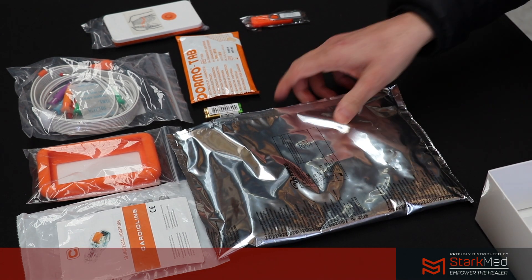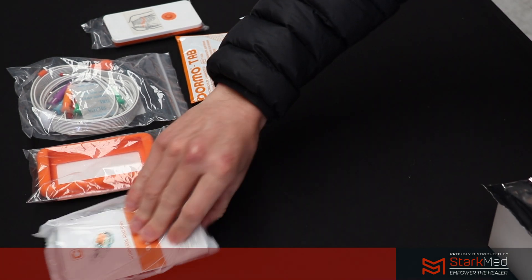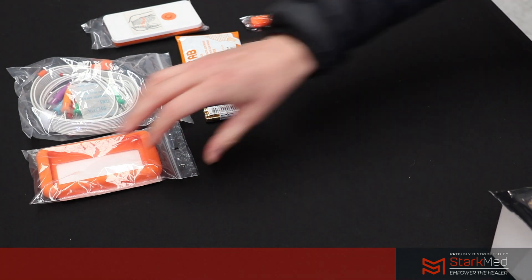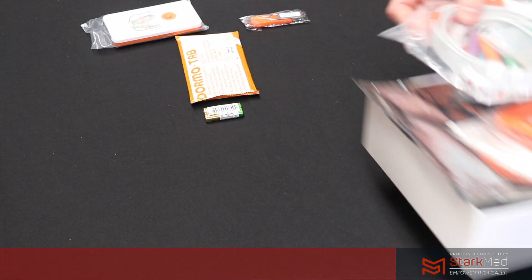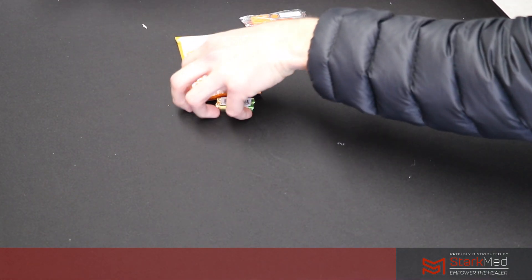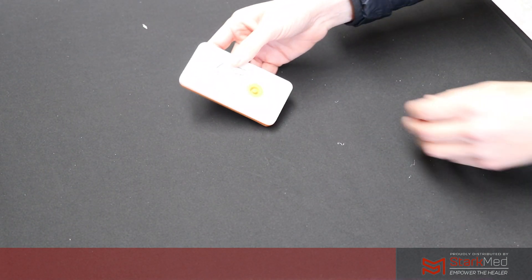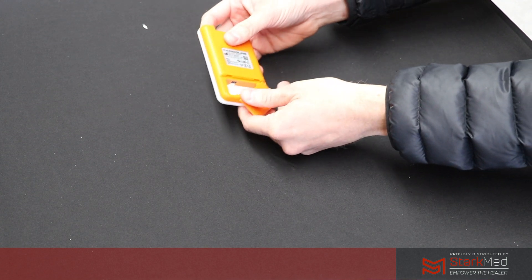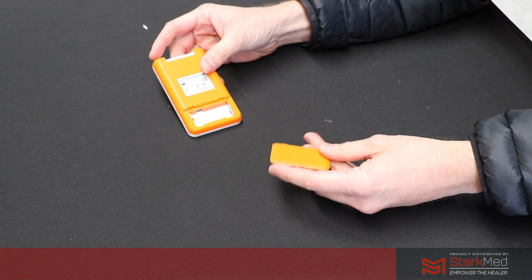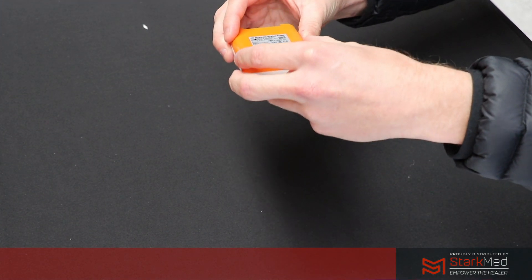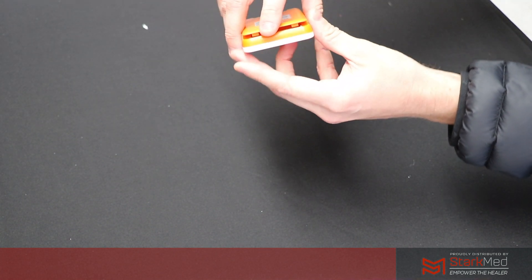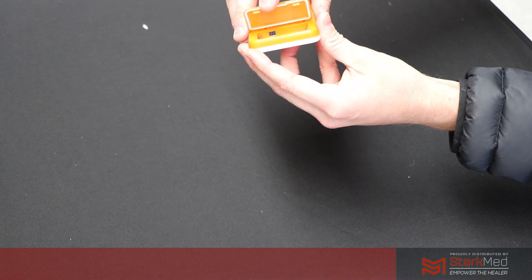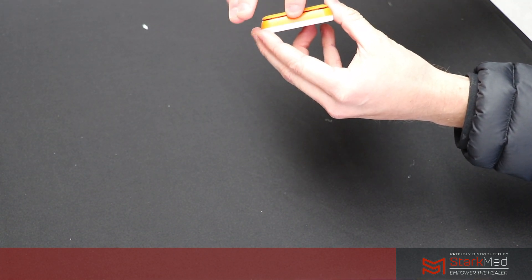So with your device, once you've unwrapped it, you'll notice here at the back is our battery casing. Pull this one up - you might need to get a little card or something underneath here to get the battery pack open.